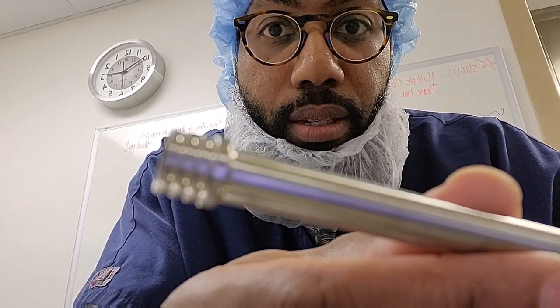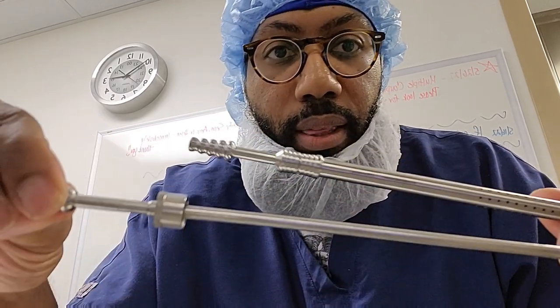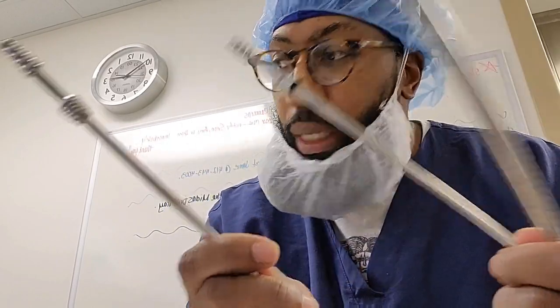The reason why — you see the serrations are within. So you have to get the one that matches this, which would be this one. See? This stays, this wouldn't go. Two different ones. Most of the time when you get these together, it's always common to check. Most people do not check — we just assume after we clean it that it's the same one. It's not. Always check your suctions.